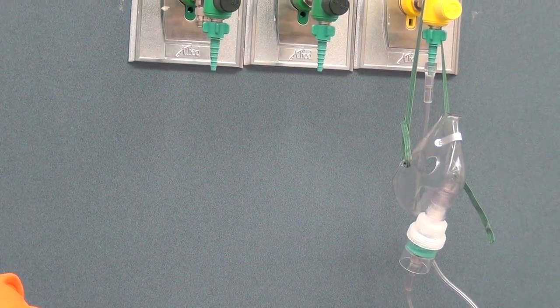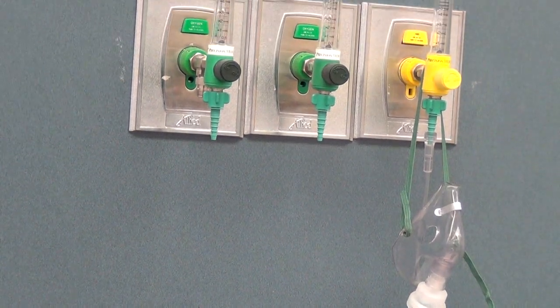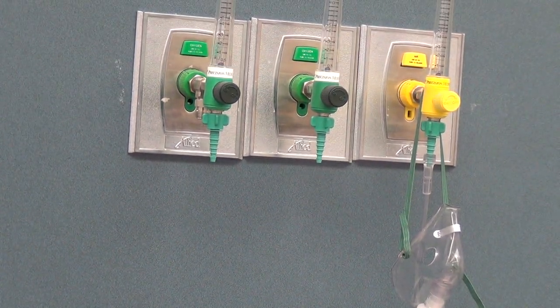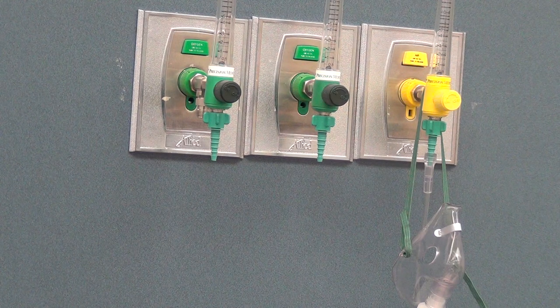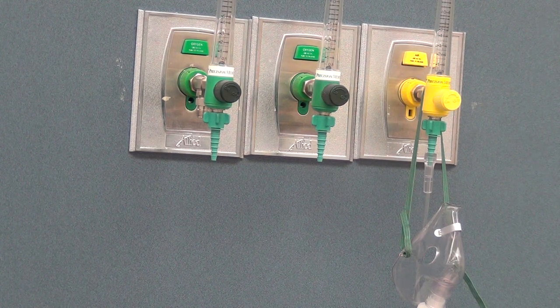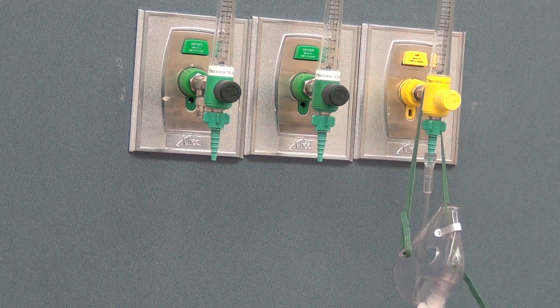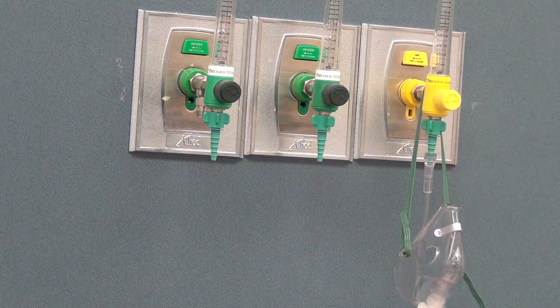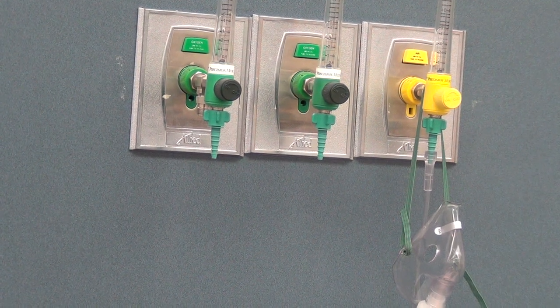Notice that the nebulizer is actually attached to air. We can administer nebulizer treatments with oxygen, but it would be important that we incorporate the use of a blender in order to do so.